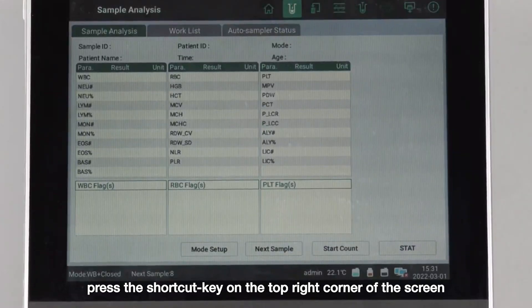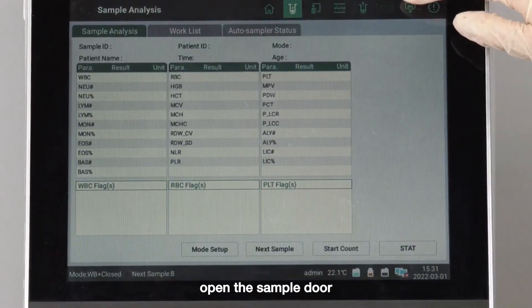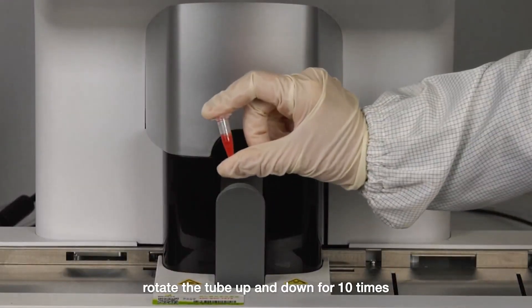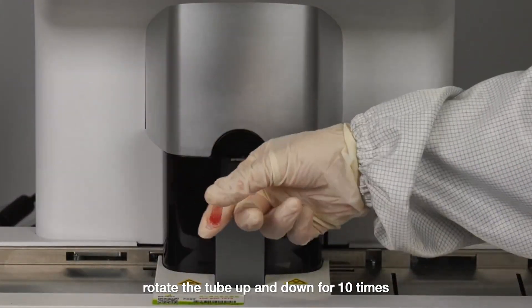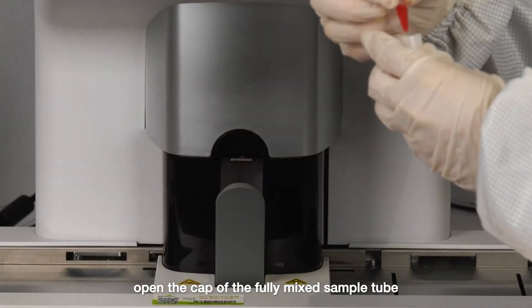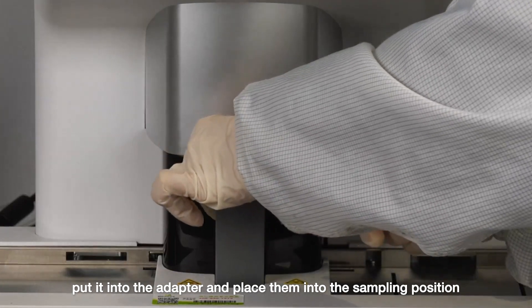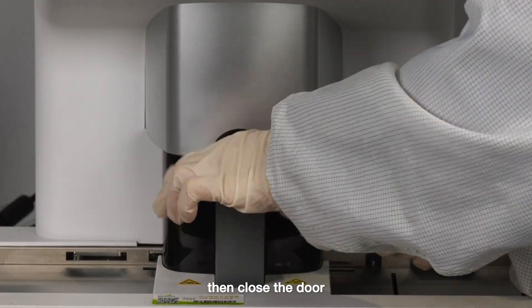Press the shortcut key in the top right corner of the screen and open the sample door. Rotate the tube up and down 10 times. Open the cap of the fully mixed sample tube, put it into the adapter, and place them into the sampling position. Then close the door.